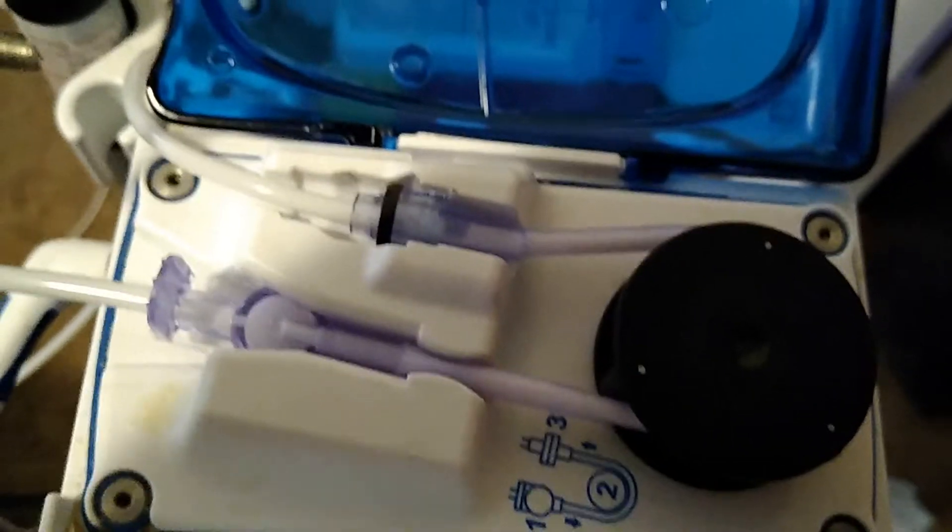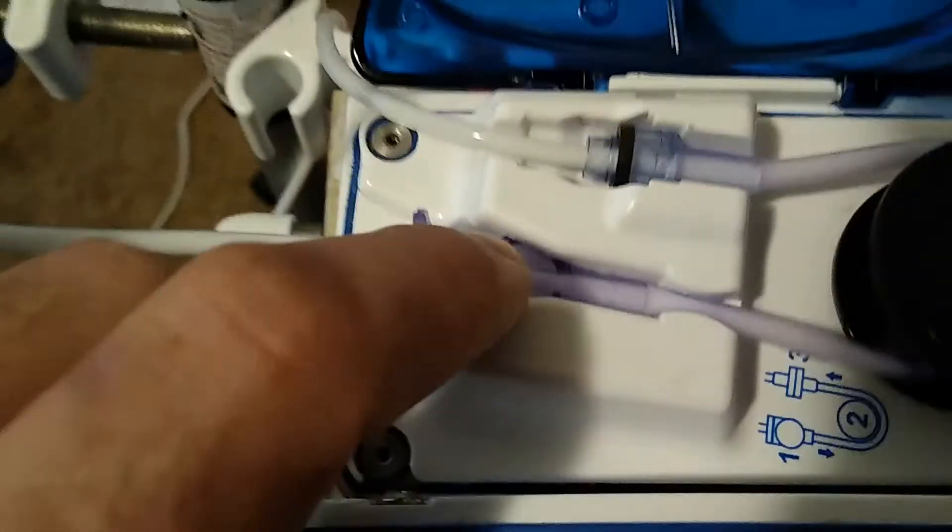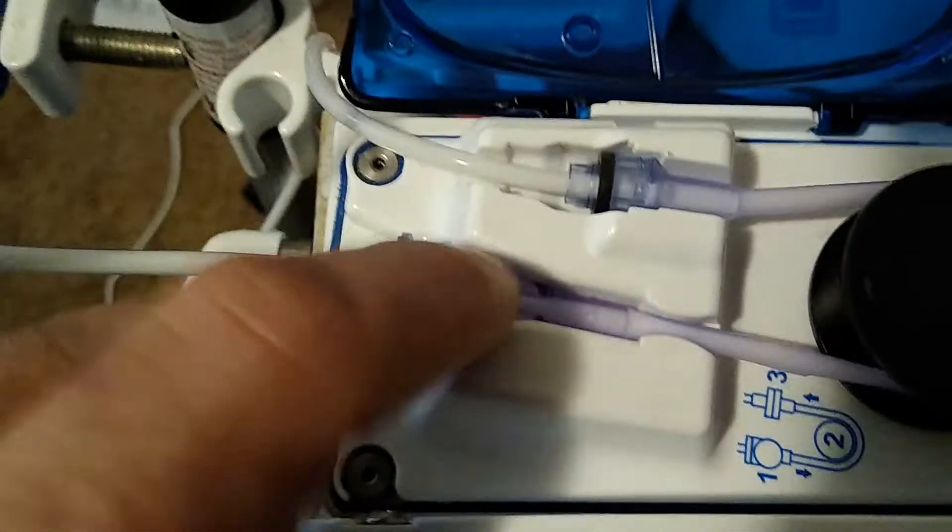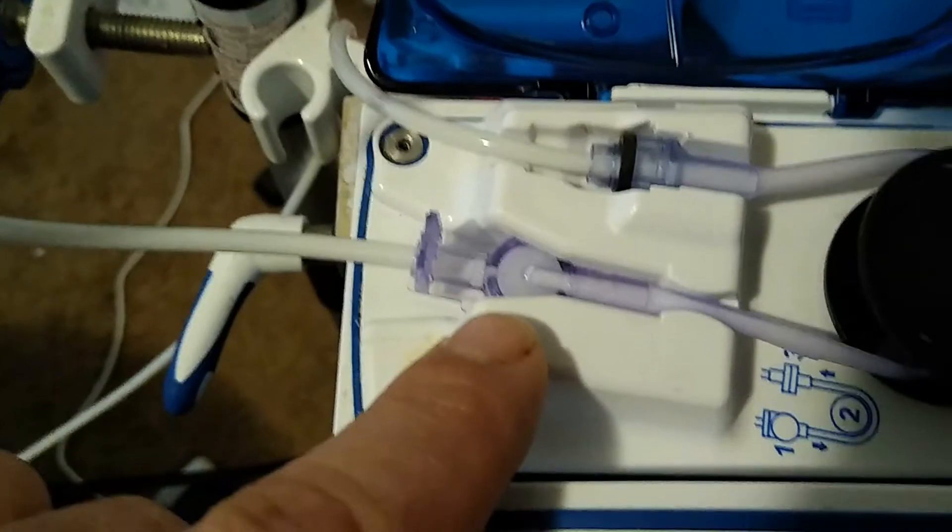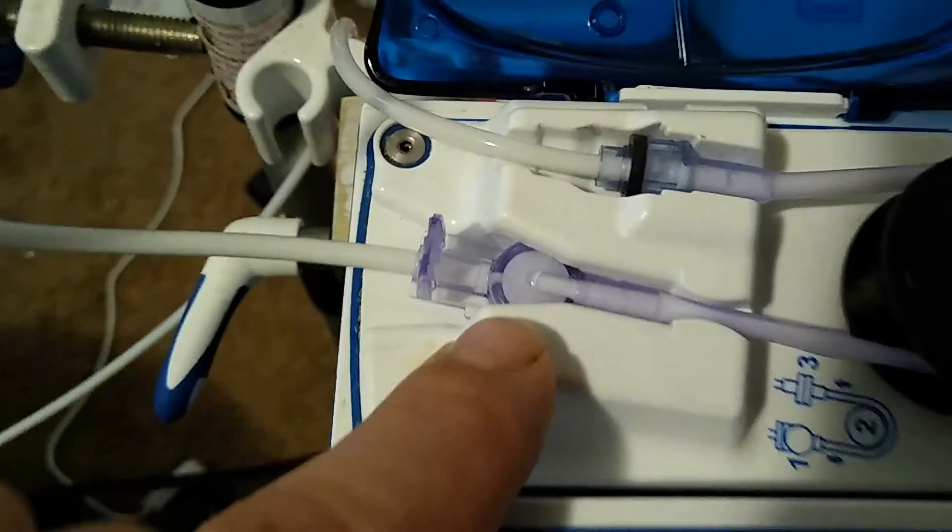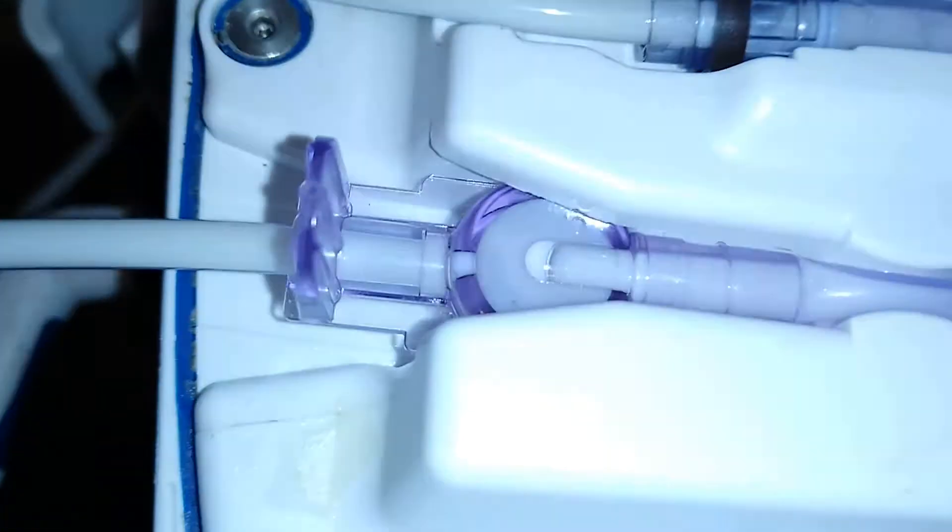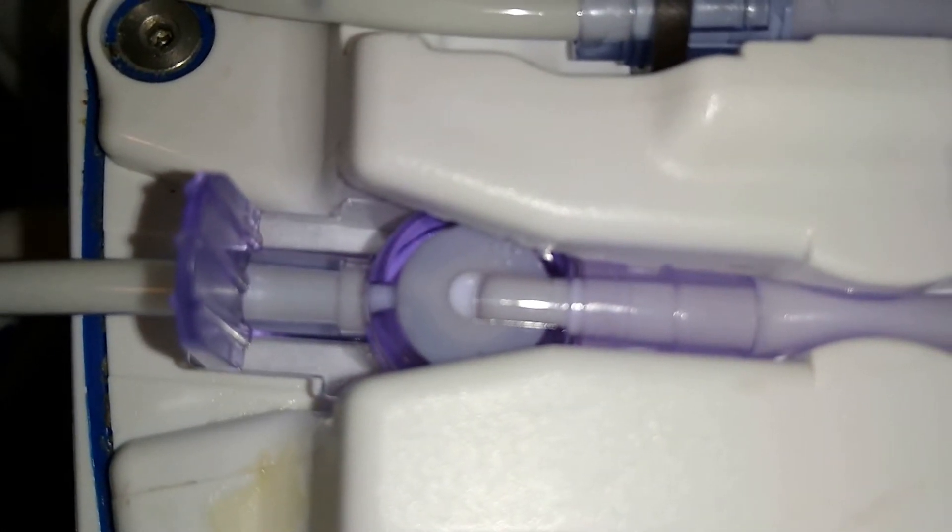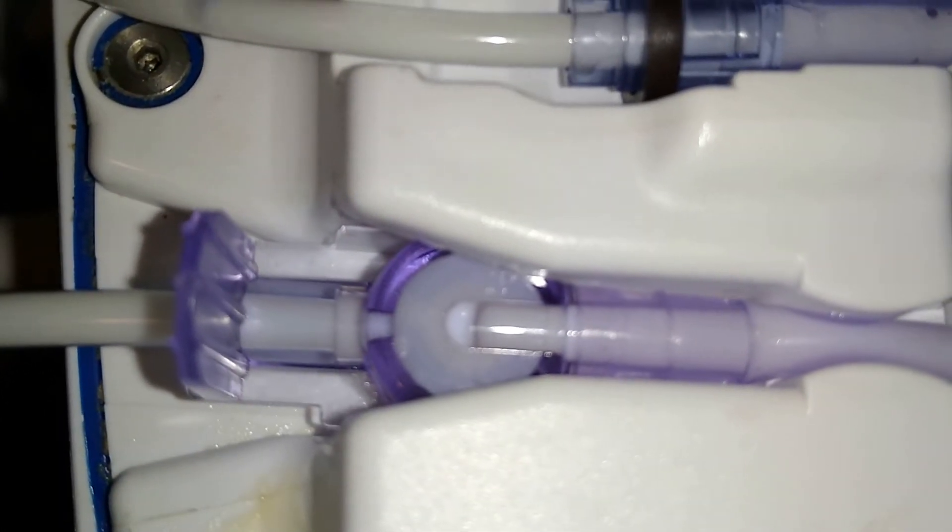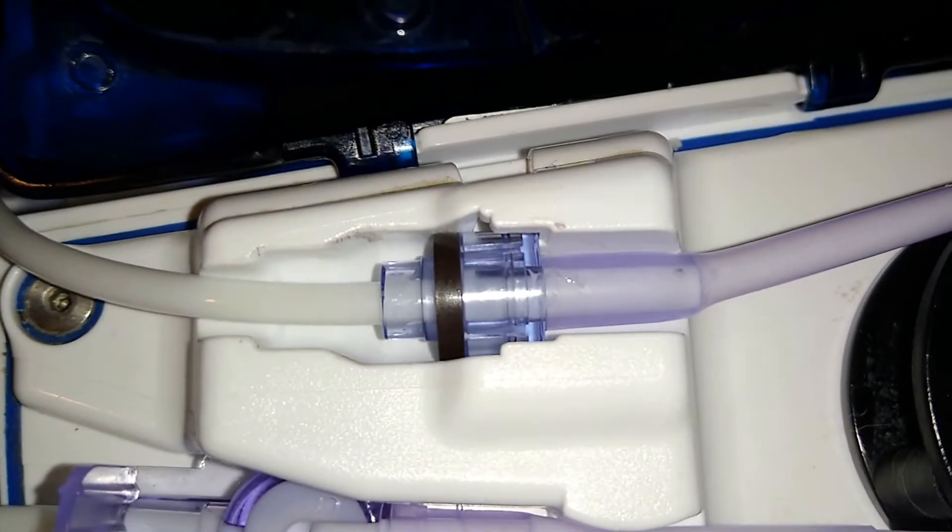So I'm going to pause until the error, actually it's starting to move, until the error pops up. But basically you want to get the air out of this, this is the actual pump, this right here. And let me see if there's any... kind of hard to focus. It still has a little bit of foam in there but I think I got it through.